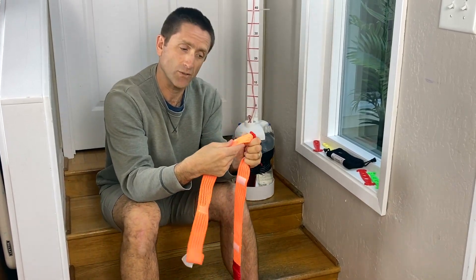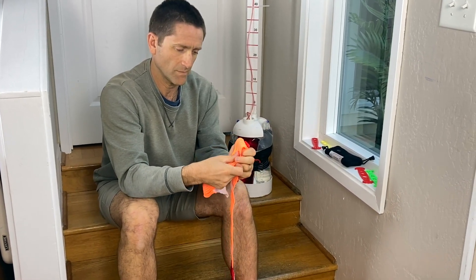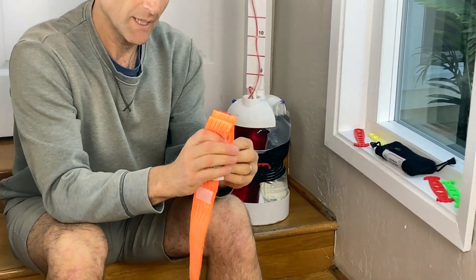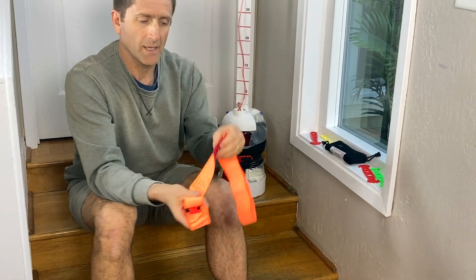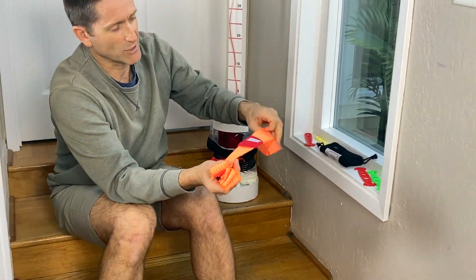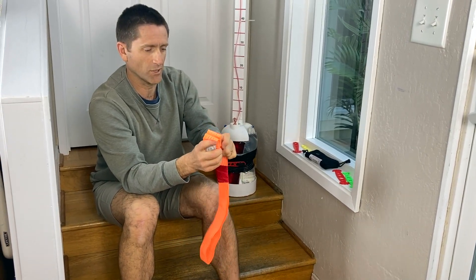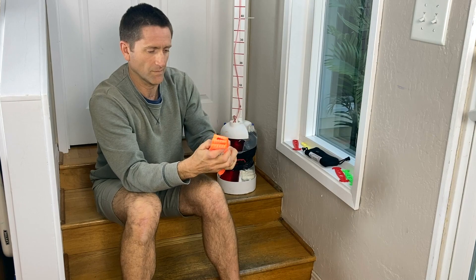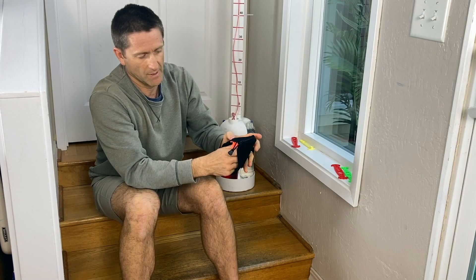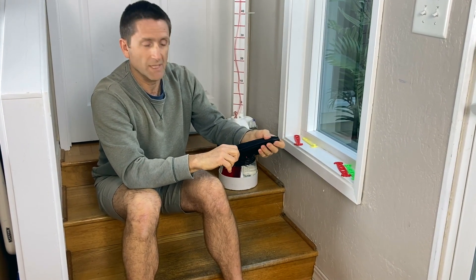For staging it, what I like to do is make one side flat — this is the label side. Make that flat, then make the other side flat as well. The sleeve I like to position close to that hook tab, and that just allows for a large loop for a larger limb. Make it flat, and now this all fits within the pouch. You don't have to have the pouch, but it's a nice way to carry it.